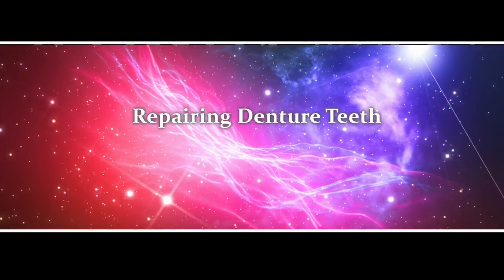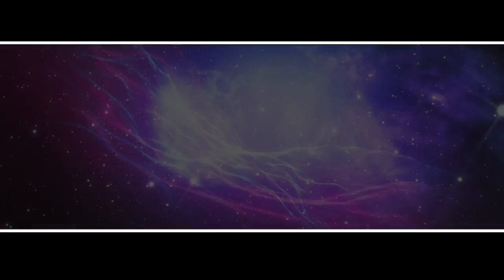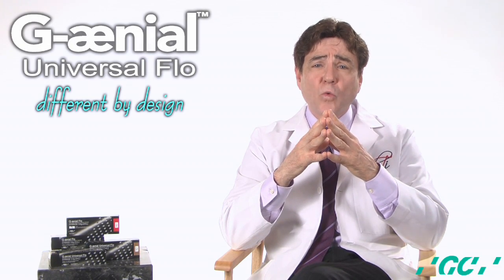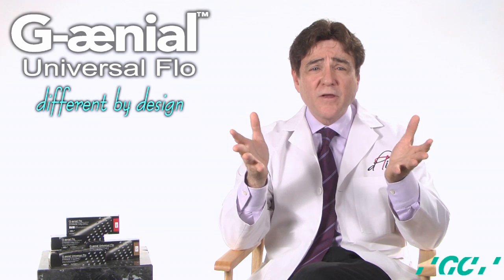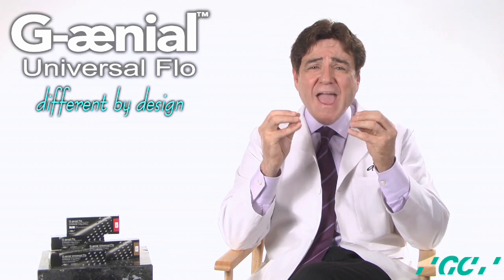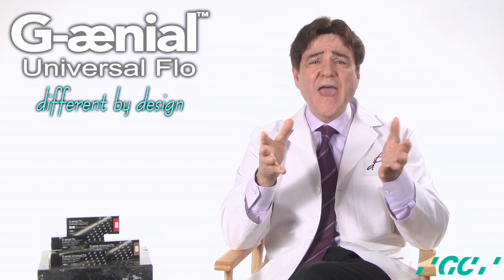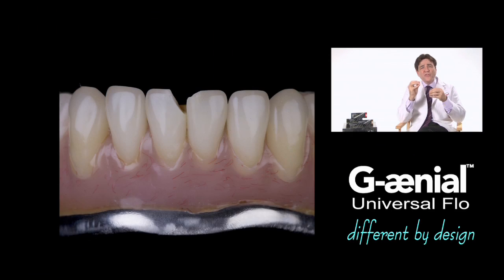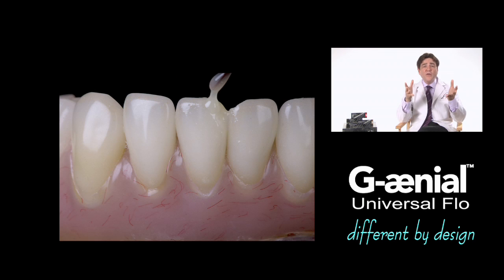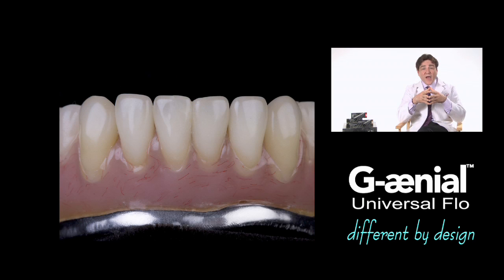Repairing denture teeth. Generally, fractures to denture teeth occur as emergency situations and require replacement. Replacement can be achieved with relative ease in the laboratory with an adequate inventory of denture teeth. However, with a proper surface treatment, these fractures can be repaired with next-generation flowable composite resins such as G-aenial universal flow at chairside.